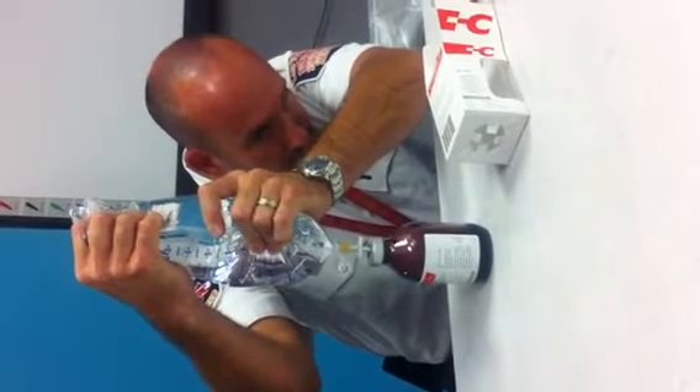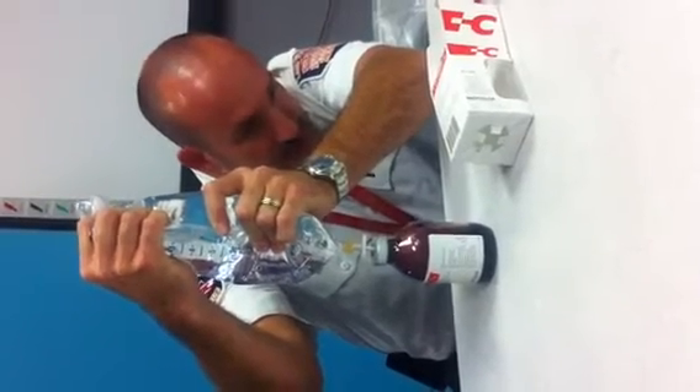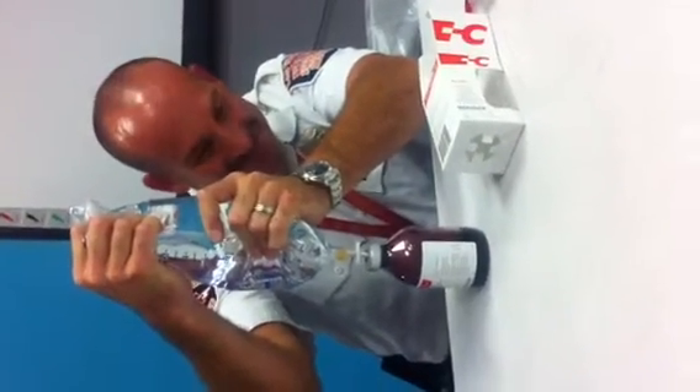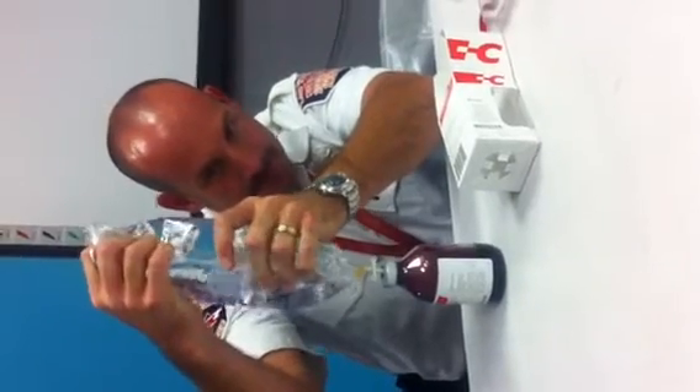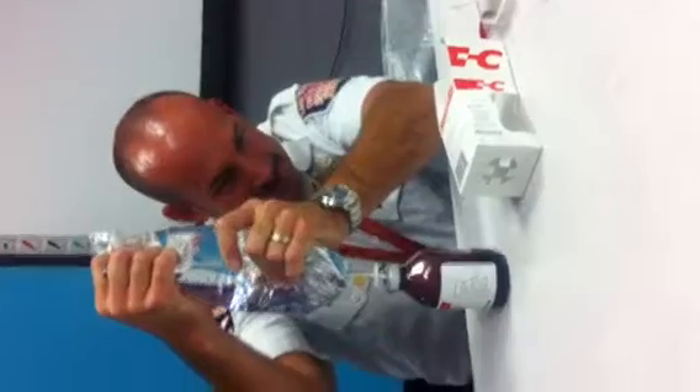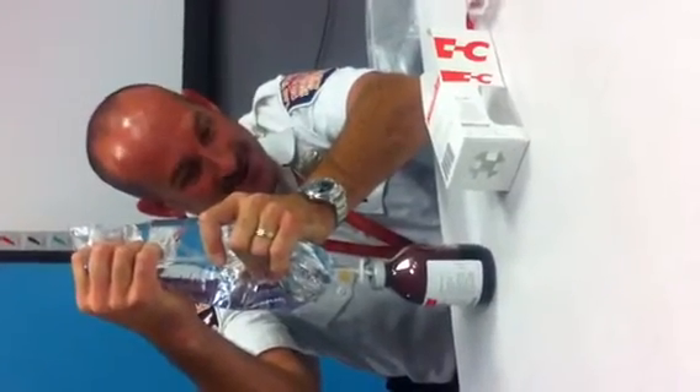Is there a double spike inside the kit itself? Yes, it is. It's like a Pinot Noir — it's really dark.